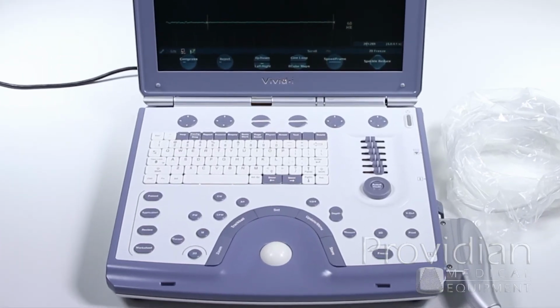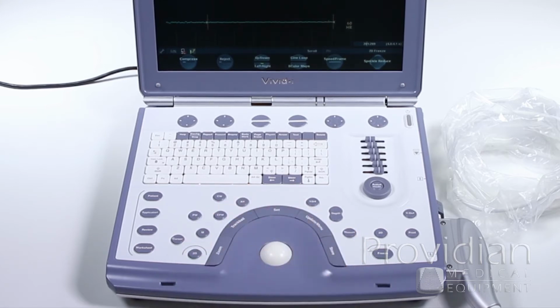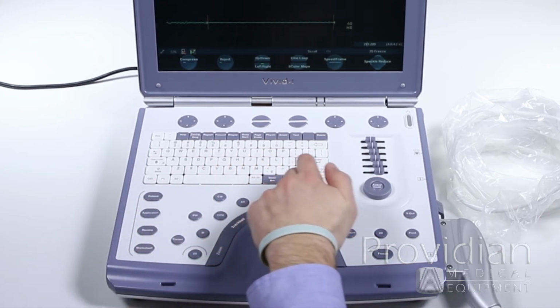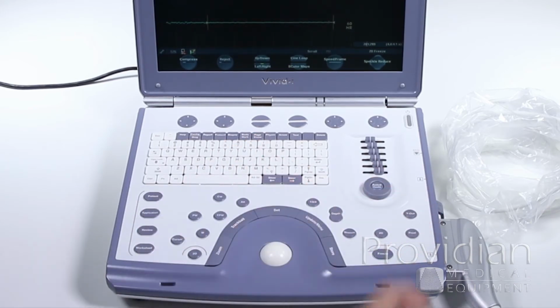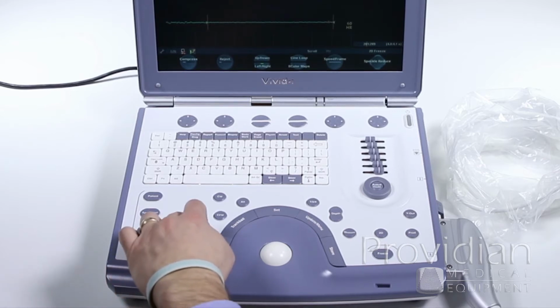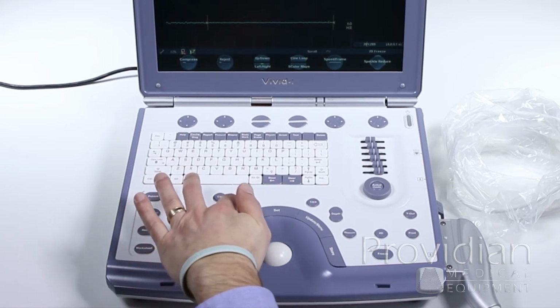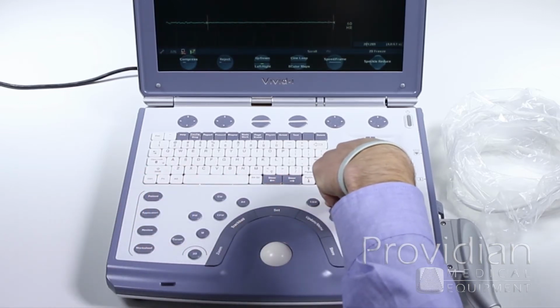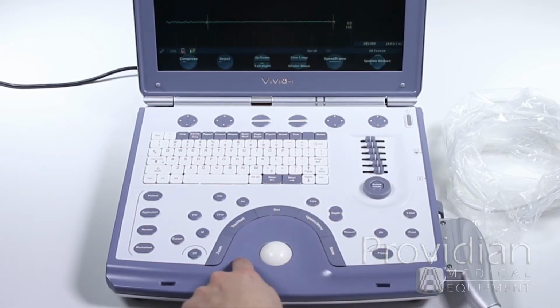There's a lot of buttons to look at here, and the most important thing to remember is that it is designed around your hand. Your left hand for scanning, and the functions you'll use most are going to be closest to your hand. So while you're scanning, most of the items you're going to use are in this general area right here. So you have your imaging mode buttons, 2D, your cursor for the pointer, M mode, PW, CFM for color flow, CW, and this is a programmable Alt key, single screen, dual screen, quad screen, depth, measurements, and you have around here your zoom button.